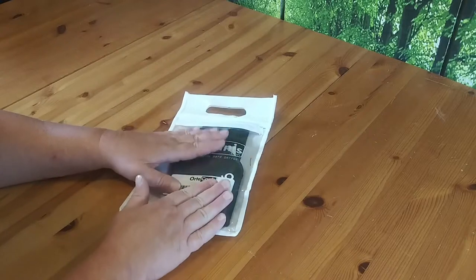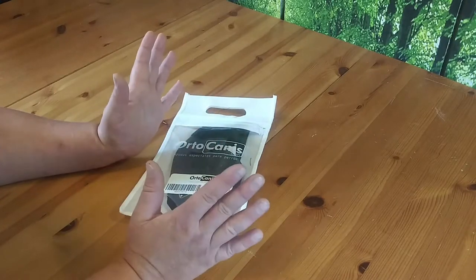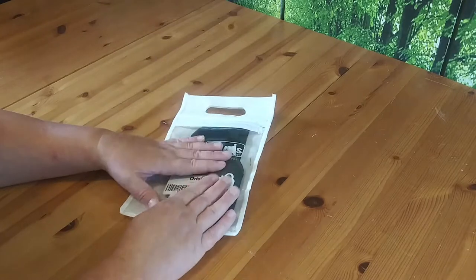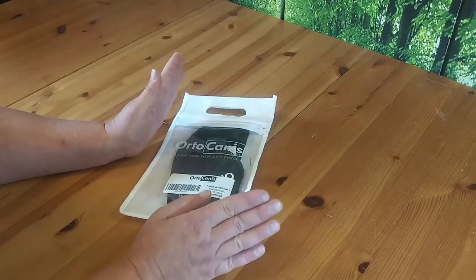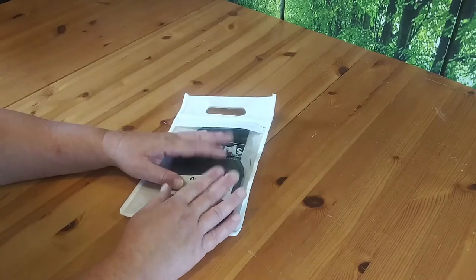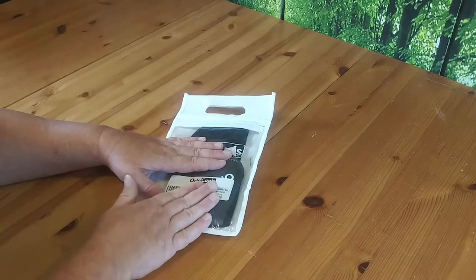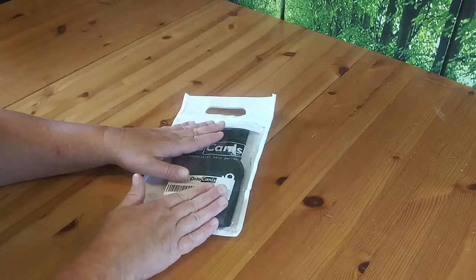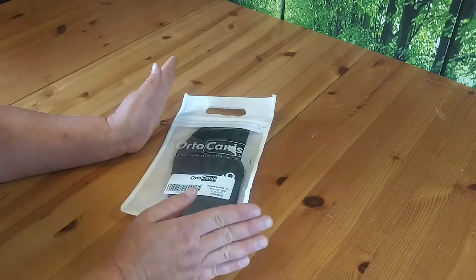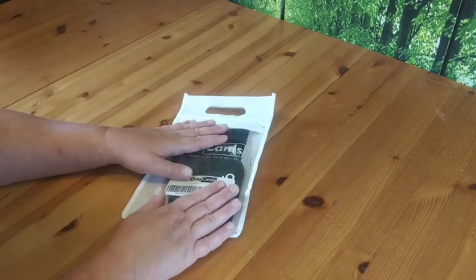When I was checking the price, $50 is a lot of money. Good news is, no matter what size it is, it's always $50. Bad news for some is, no matter what size it is, it's always $50. We're going to go ahead and put this on — I mainly got this for going on car rides because he's been kind of mopey since he really hasn't been going on car rides.